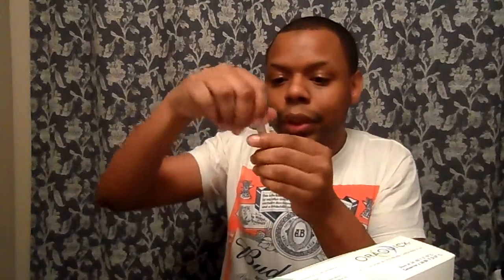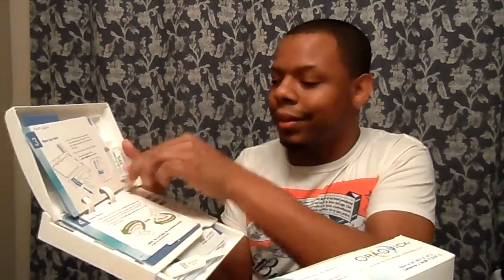It says don't eat within 30 minutes or brush your teeth or use any mouthwash — they need your gums in their natural state. It says pop the top on the tube and be careful when you open it because the juice is what reads your results. It's in the bottom, so I have to do it really carefully to keep the liquid in the bottom.